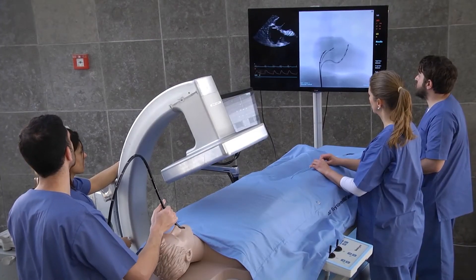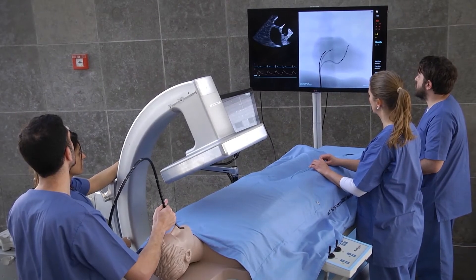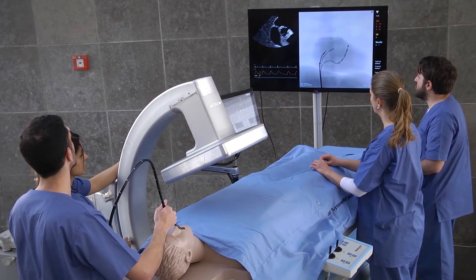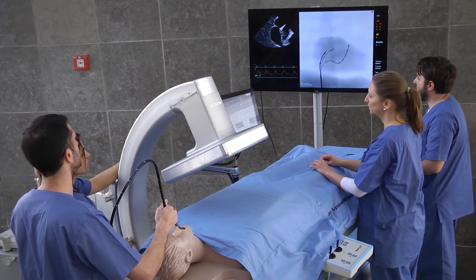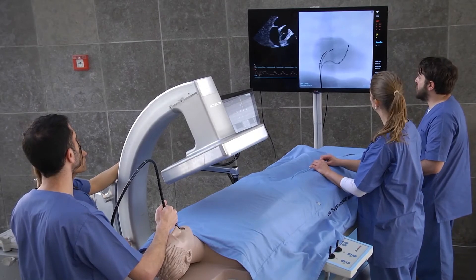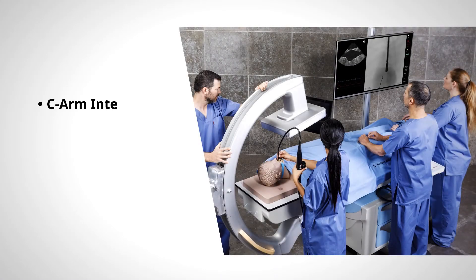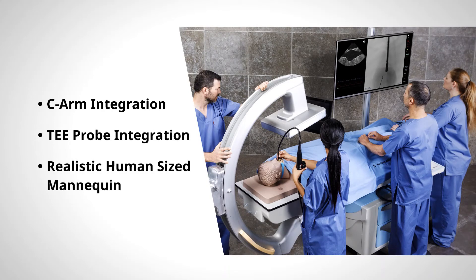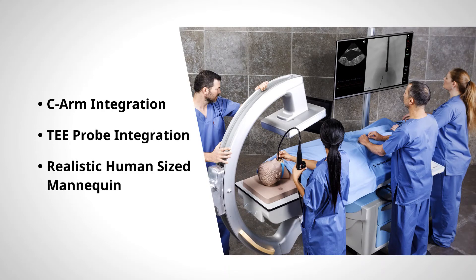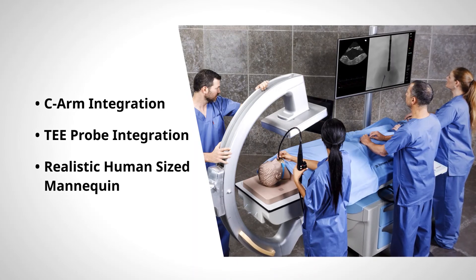This is an example of transeptal puncture team training, where the primary operator needs to work with the x-ray technician and the echocardiographist to get the appropriate views to perform a safe puncture. Those features make the Angiomentor Suite ideal for enhancing team communication skills while training on endovascular interventions.